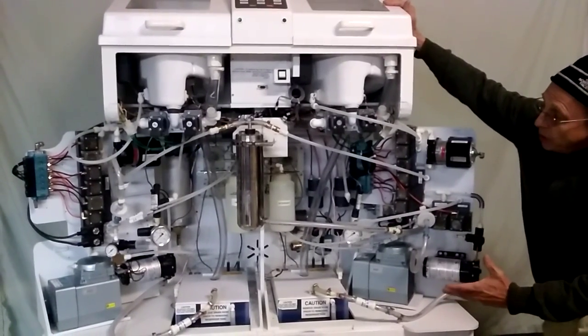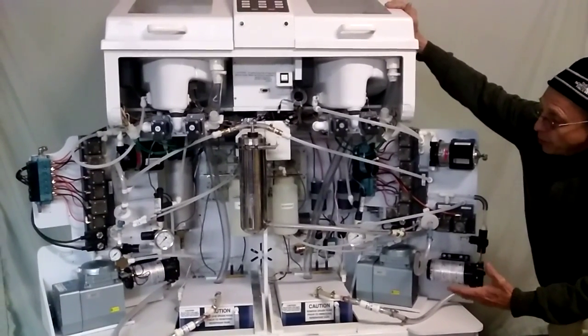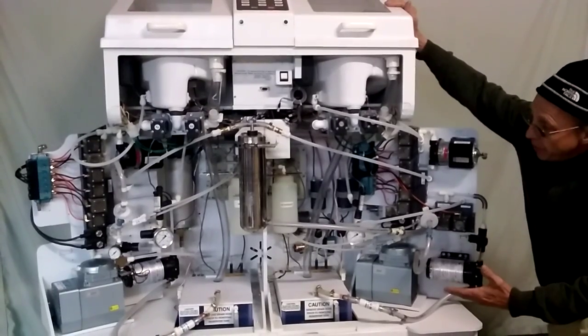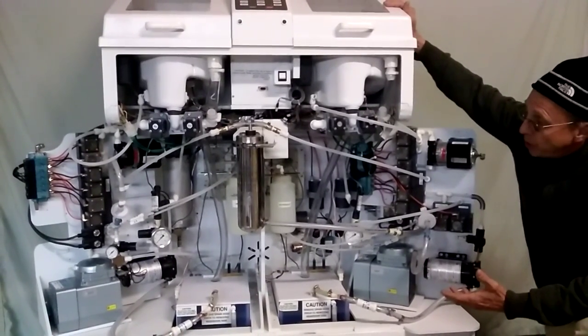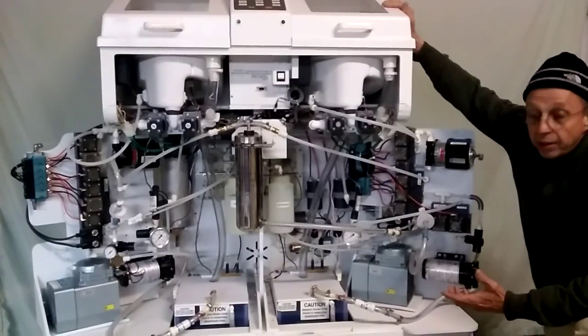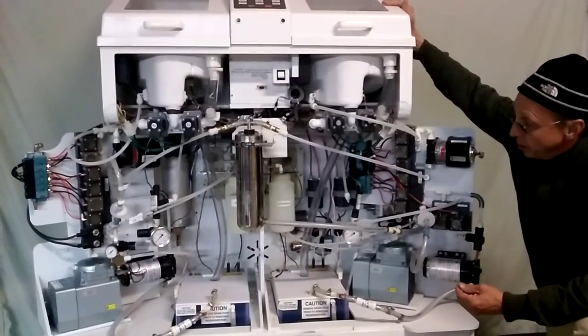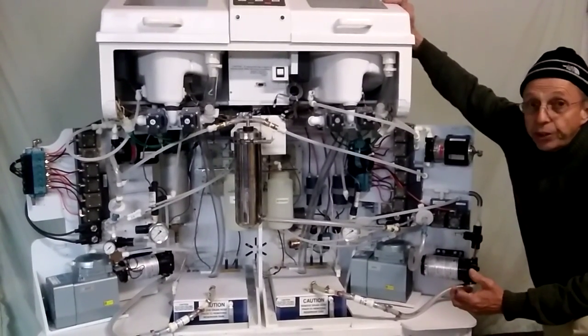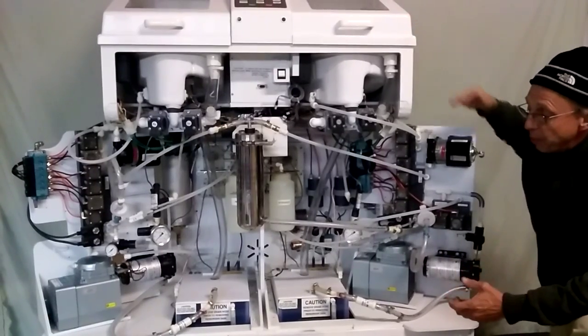And you can do this while it's operating so that you can learn about the flow paths and see how the components are working during operation, which makes learning easier, we think. There's no disassembly required during the training phase.